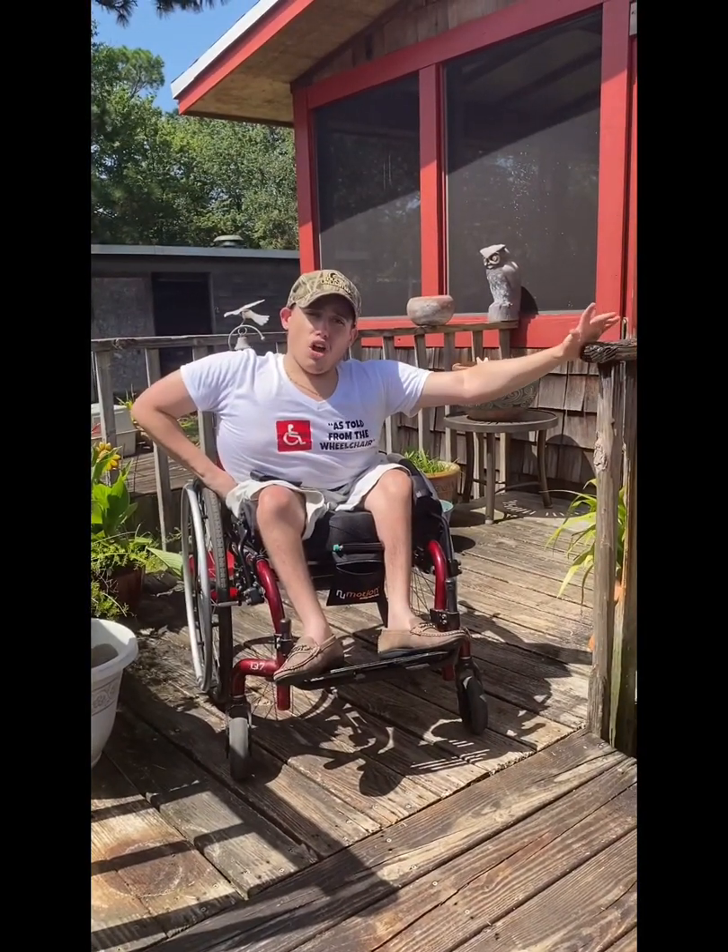In a second, we're going to come back and I'm going to give you guys some housekeeping tips on how to keep your ramp stable and clean. Every six months or so with your ramp, it should be mandatory to pressure wash your ramp if it's wood. As you can see behind me, my wheelchair ramp is wood — it is untreated wood. I erroneously mentioned in my last video that it was Georgia pine; it's not Georgia pine, but it is untreated. So every six months or so, take a pressure washer if your ramp is wood like mine and make sure that it's clean.